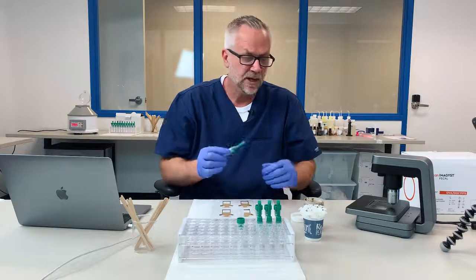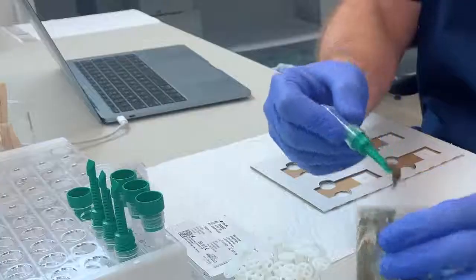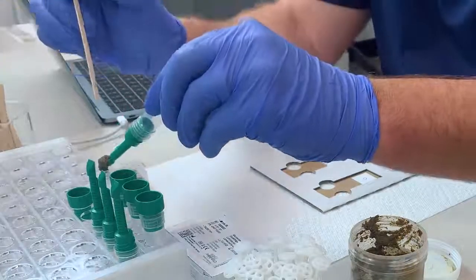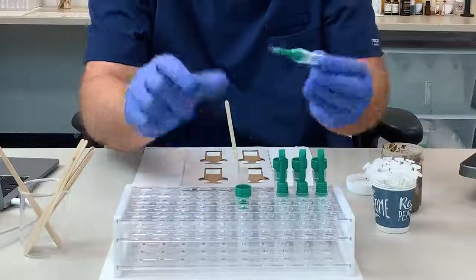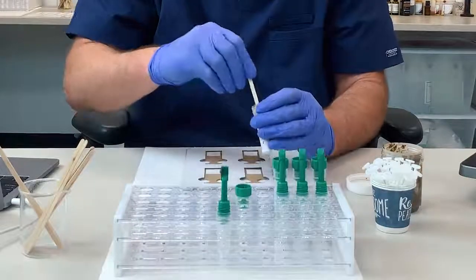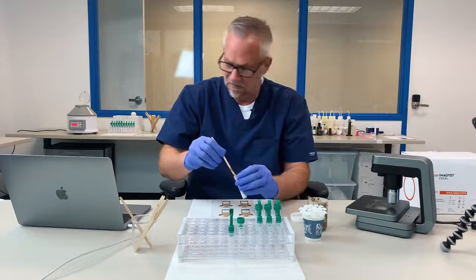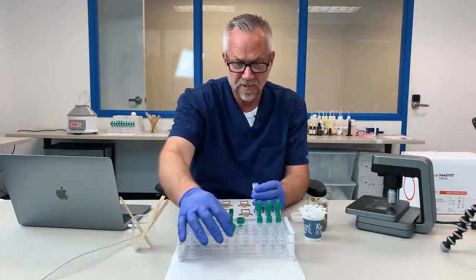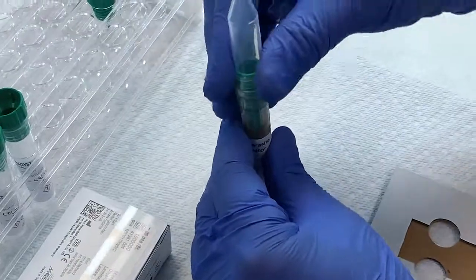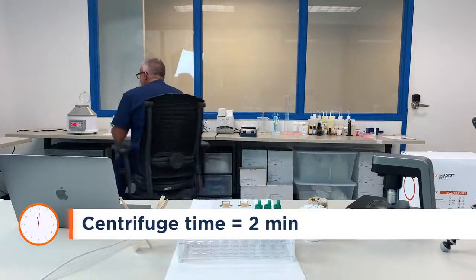Next, we're going to get one scoop of about one gram of fecal material onto the scoop, and we're going to move that into the collection tube. We're going to use the stir stick to get it in the collection tube, and we're going to make sure to stir that up and get it good and emulsified. We're going to put the scoop back on the tube, give it a good shake, and we're going to centrifuge for about two minutes.